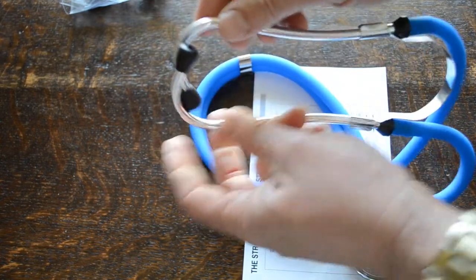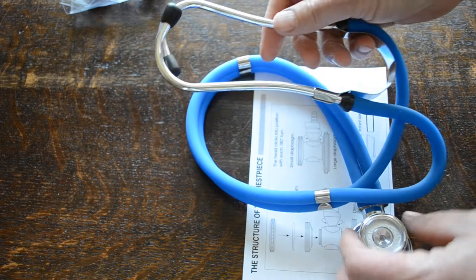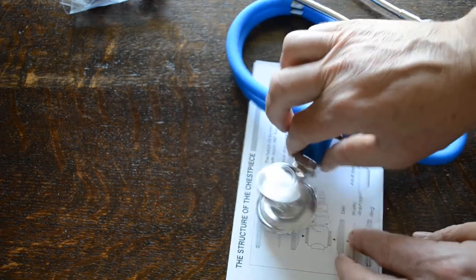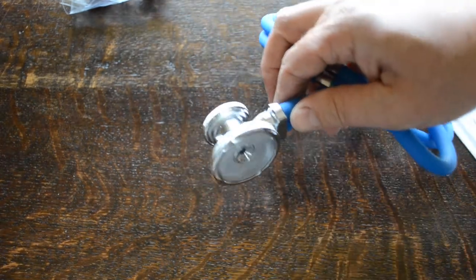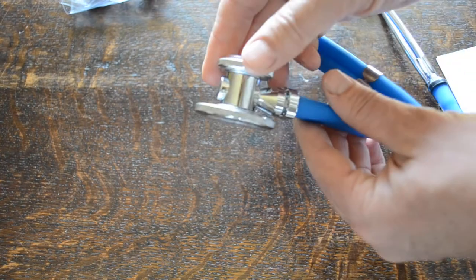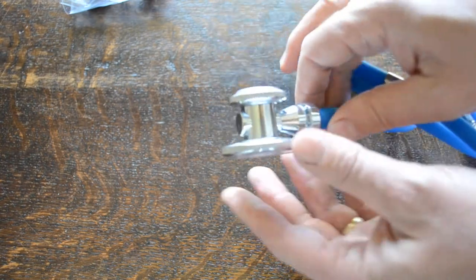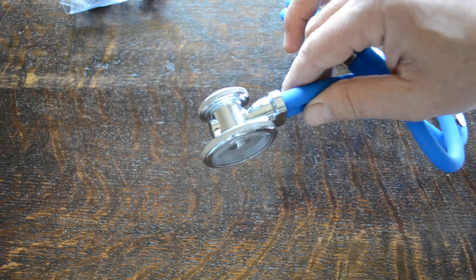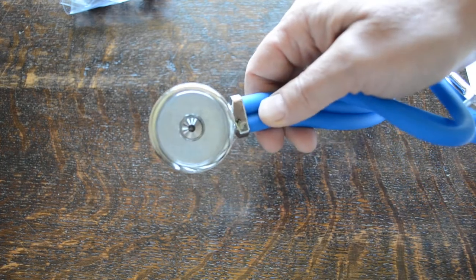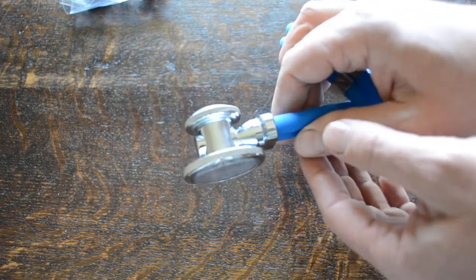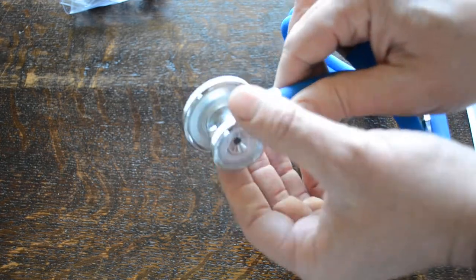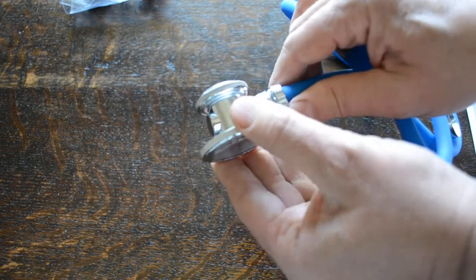Comes with firm medium-sized ear tips fitted. If we show you the chest piece now, just take the instructions away. This is a really nice quality surgical steel constructed chest piece. This gives you five options in terms of setting this up, which we'll come to in a minute. It's a very nice quality robust rotating chest piece.